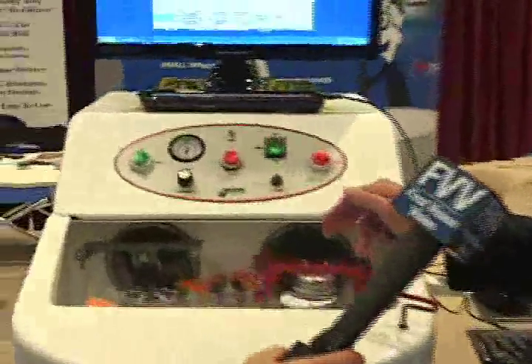It also utilizes a very simple 3-pad process that is used with just tap water. First is a diamond impregnated pad that will generate the curve into the lens — this can be utilized over 500 times. The next pad is just a fining pad to smooth the lens ready for polishing. Then the polishing is done without water at low speed.